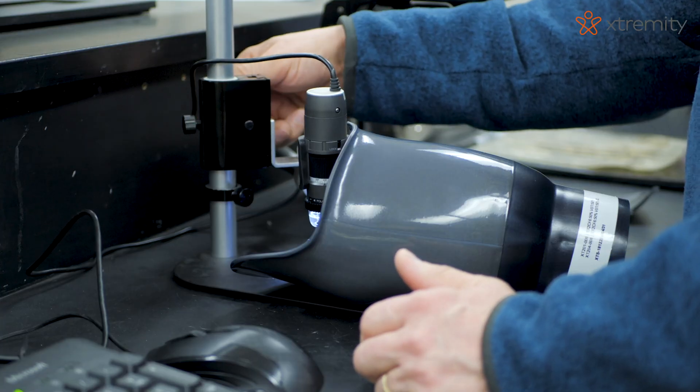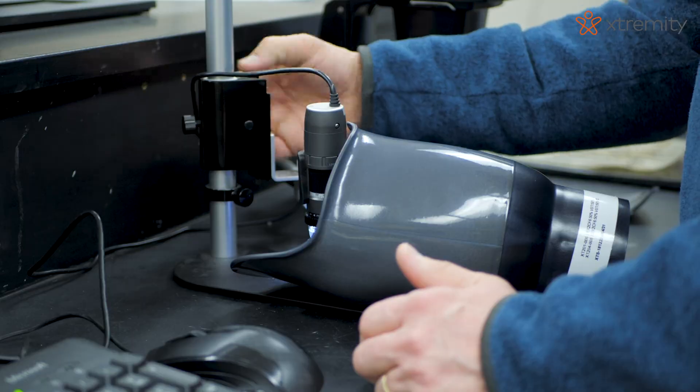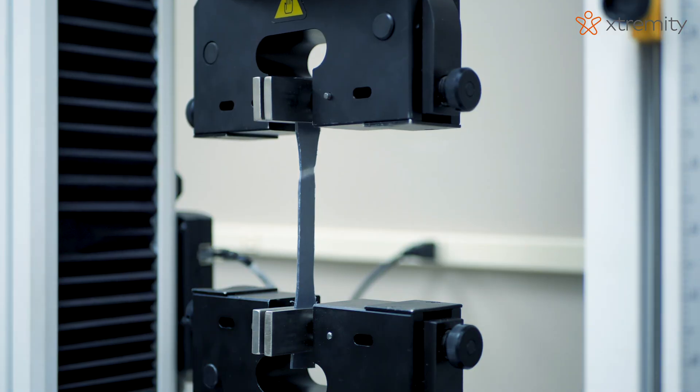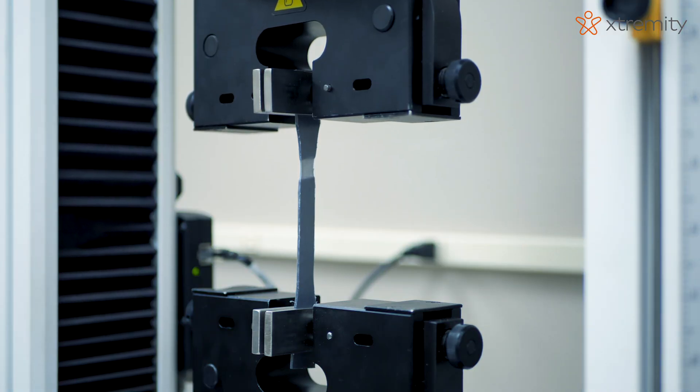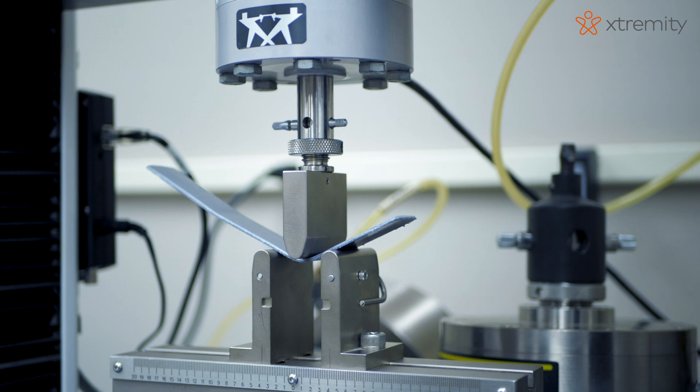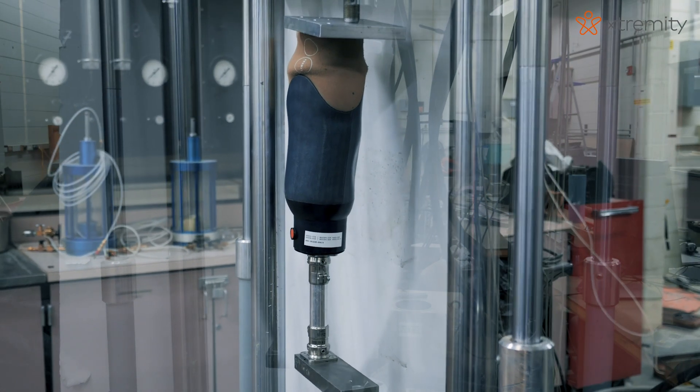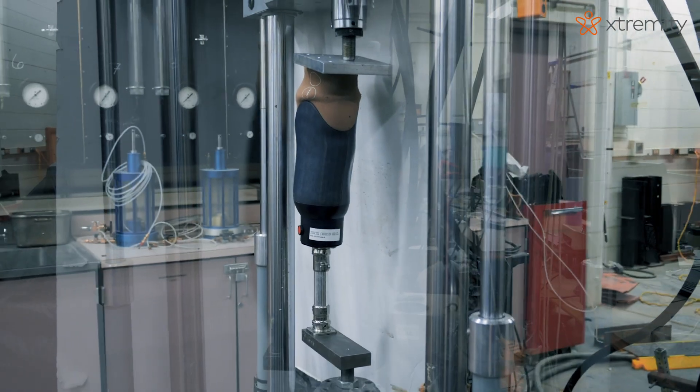The real challenge for us was to develop a plastic that would mold very comfortably and very nicely at about 250 degrees Fahrenheit. We've also specially formulated the polymer to be structurally stable up to temperatures of 140 degrees Fahrenheit. We've had to make dozens of iterations and approaching thousands of prototypes to zero in on a formulation that has the balance to do something that polymers just don't do.